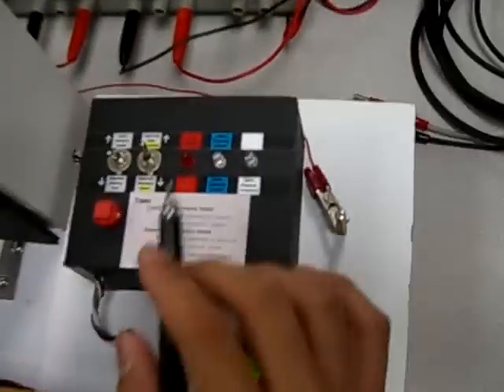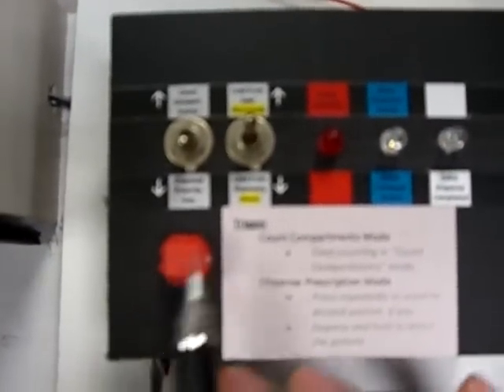This push button is a multi-purpose trigger. It can trigger the counting of compartments, the selection of the patient, and the dispensing of the patient — depending on whether you press and hold, or just press.